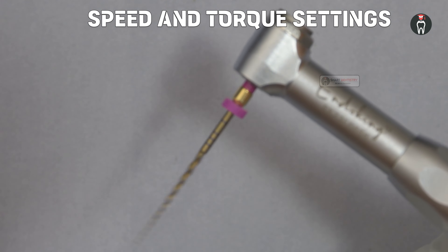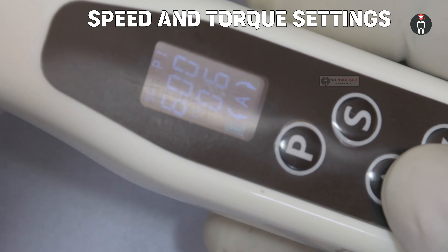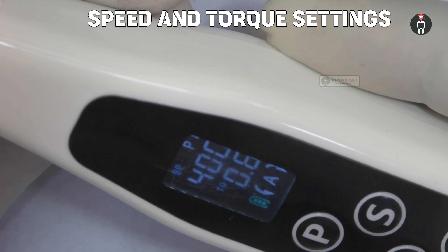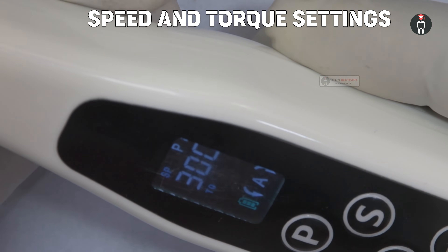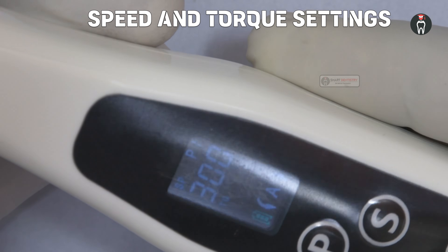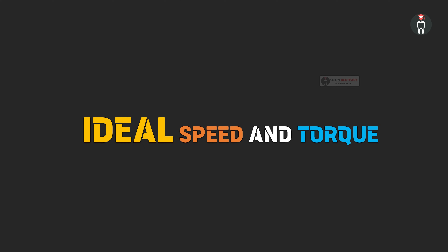The torque settings for the file will be in the range of maybe 0.6 to 4 in most endomotors, but there are endomotors which have torques up to 5. We are not going to see how to set the torque for each file system specifically. We are going to understand the different concepts — specifically, how to determine the ideal speed and torque for every file you are using, so that after understanding this, you will be able to set the ideal torque and speed without seeing the manufacturer's instructions.